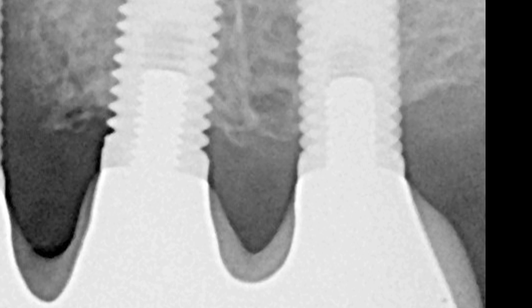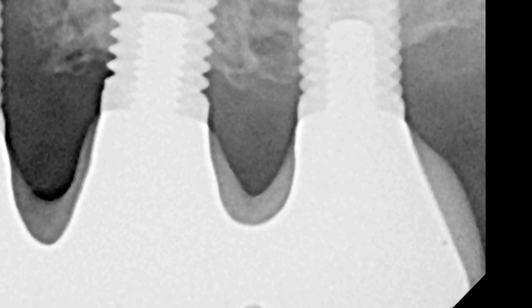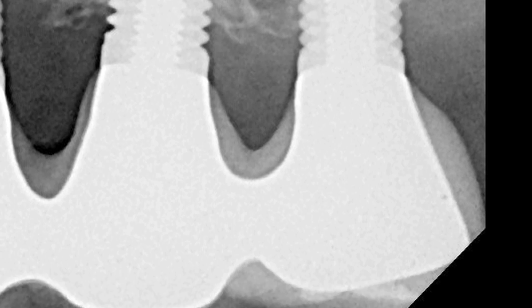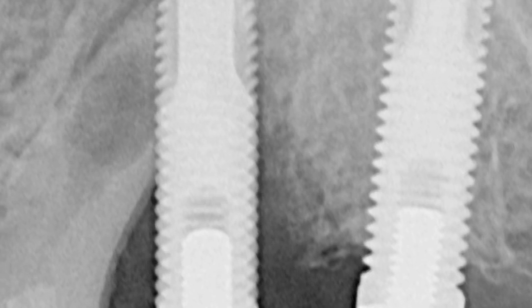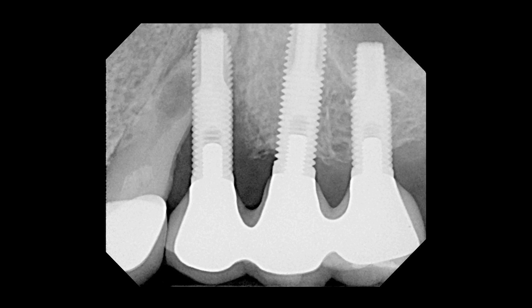This is the x-ray that kept me from surgically placing an implant on my own for at least the last 10 years. Here you see two implants — they look pretty nice, crowns look splendid together, good bony support around the implants. As we scan to the mesial, you see some bone loss on the distal of the first of those three implants. And as we continue to sweep over to the mesial — ouch — there's the problem. We've got an implant screwed right into a tooth. That is not osseointegration. That is odonto integration.